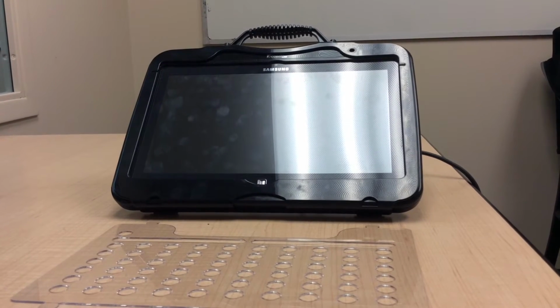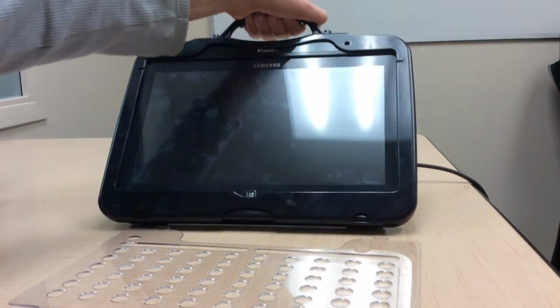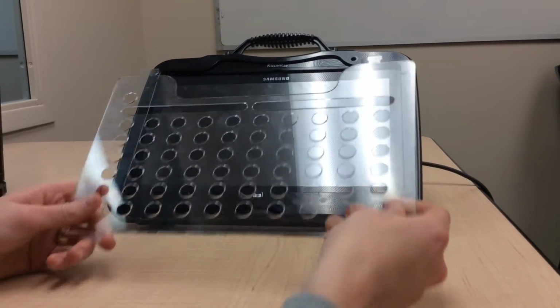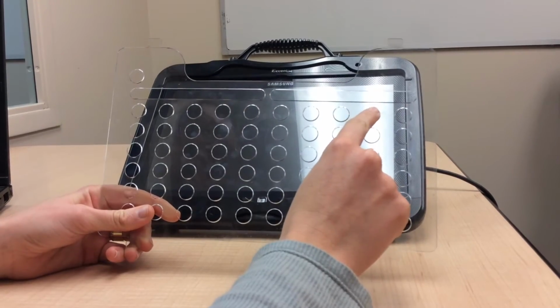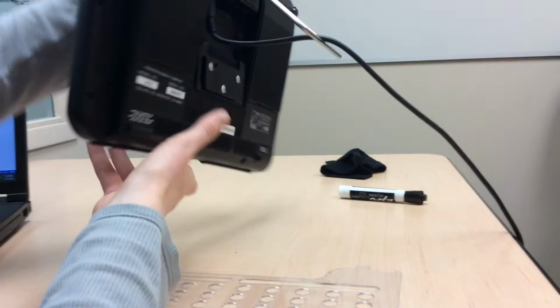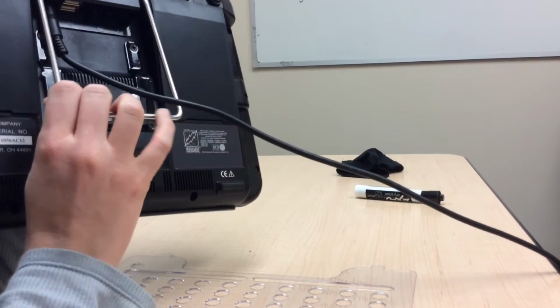So there are a few features that we want to look at today regarding the outside of this. We do have a carrying handle, which makes it nice and convenient for portable reasons. There is a variety of screens that you can attach. You just slide it up here and put these markers in the bottom. This can help the patient being able to select certain buttons. They have a target to put their finger in. If we turn our device around, we have a nice stand that can go down if you want to lay it down, or it can go back up to have it up for better viewing purposes.